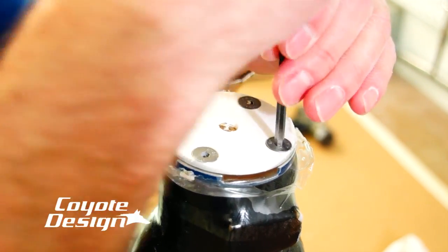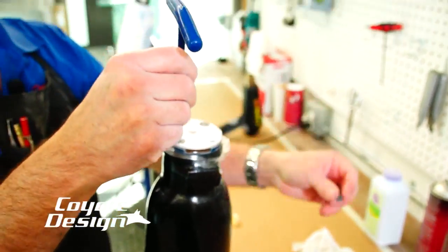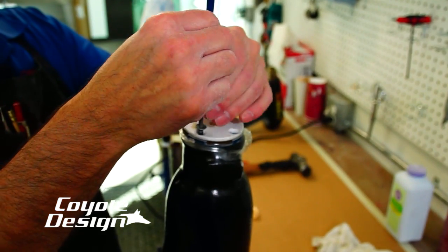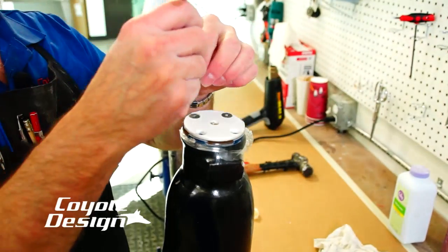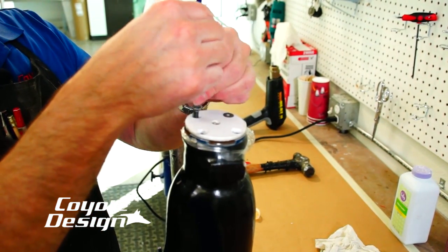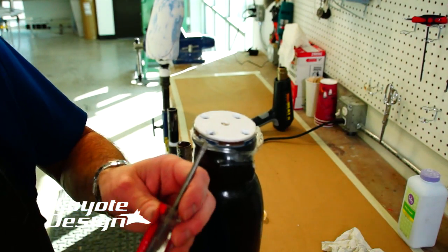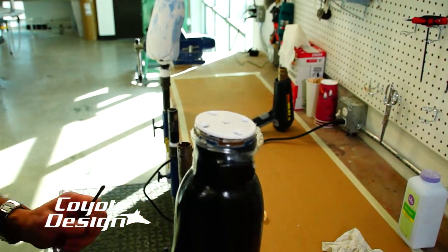I cleaned my little bit of clay out of my screws, and these are coming out just as easy as can be. The other thing too — knocking that off of there like that means these screws have only been used once, and if you keep from sanding them and marring them, those screws are perfectly fine to send back with this product. They're a number 18, designed to fit with a standard pyramid. I still like doing this because you have that little bit of resin in that post circle — find you a spot, put it right on the edge of your little plate, just tap it off of there.